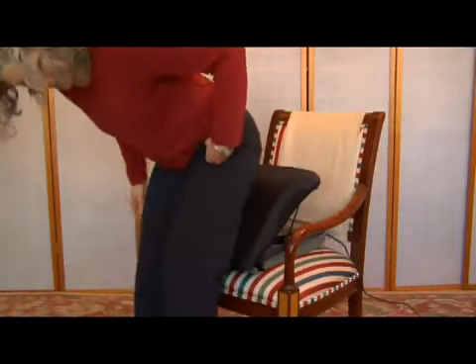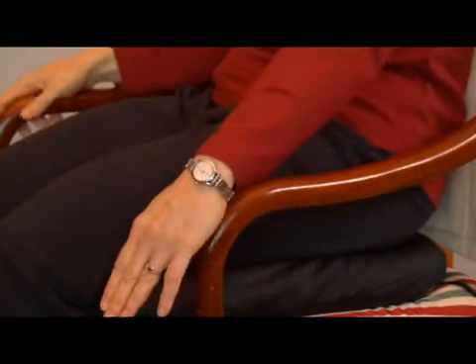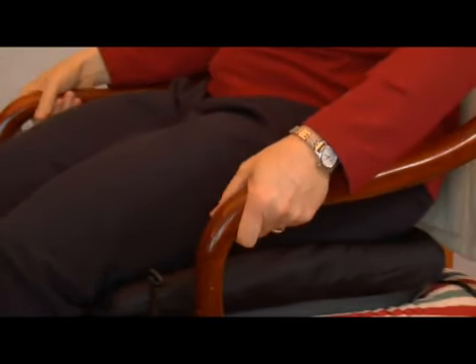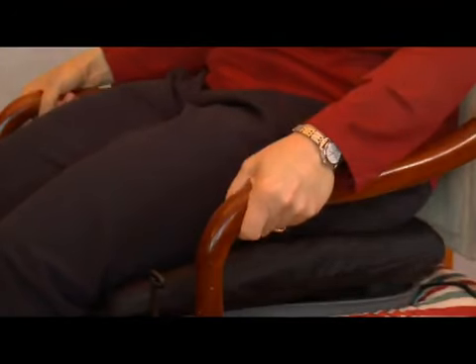For optimal use, the PowerSeat is recommended for people weighing 300 pounds or less. The PowerSeat can lift 100% of your weight, and can help you on a day-to-day basis as needed. It is especially useful as a rehabilitation tool.